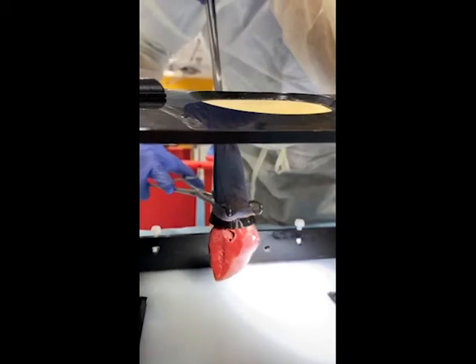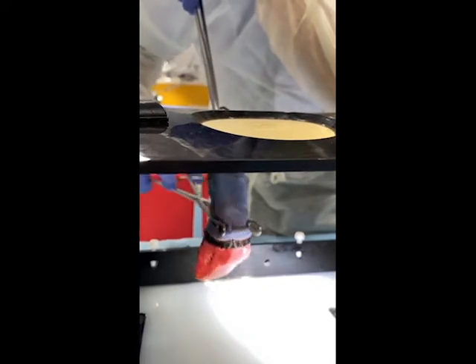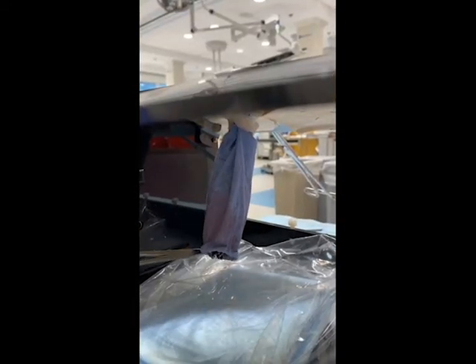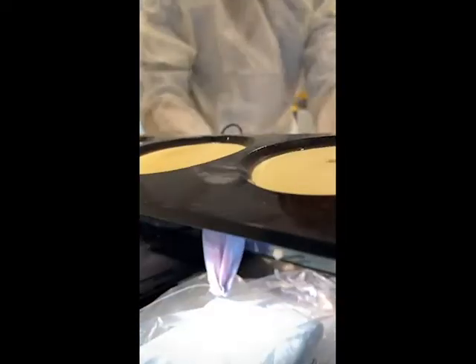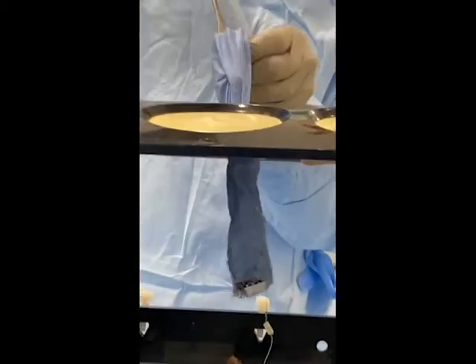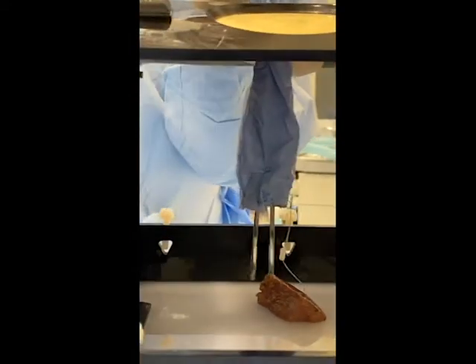The inner lining is a braided polypropylene mesh with independent braids covered by an impermeable layer of stretchable fabric, which covers the specimen, encapsulates it with a cinch, and in the proper orientation the compression mechanism of the braided mesh permits easy retrieval of specimens.